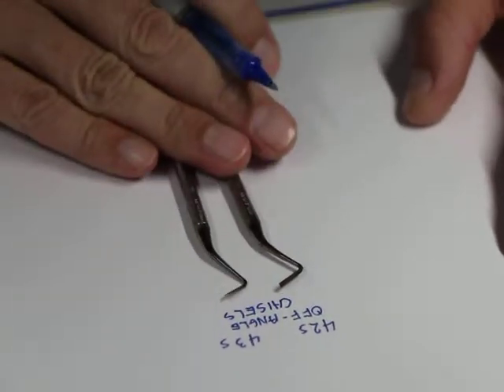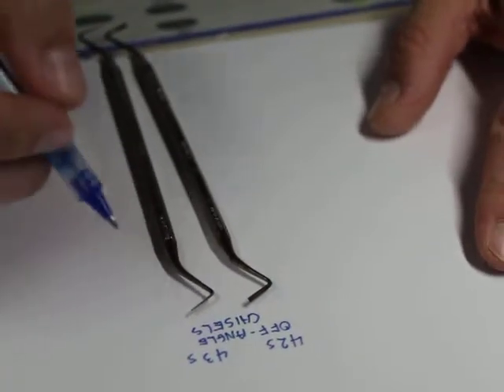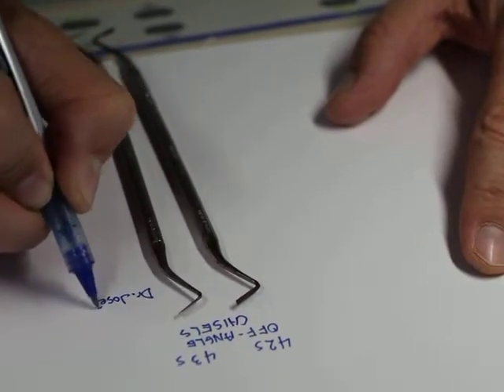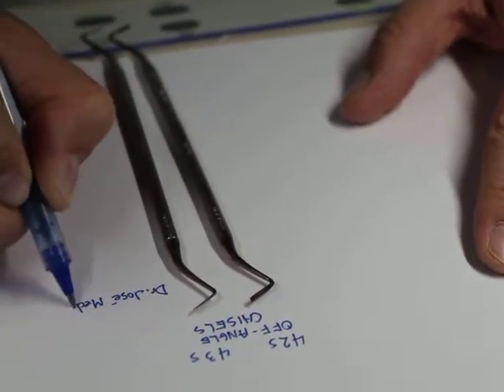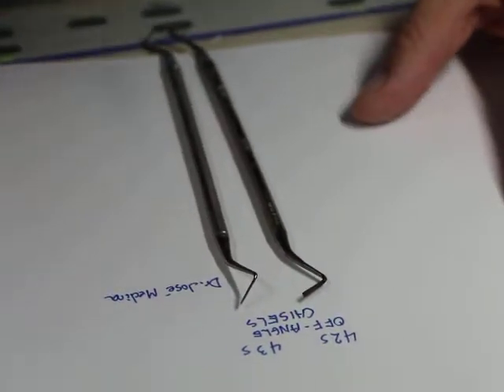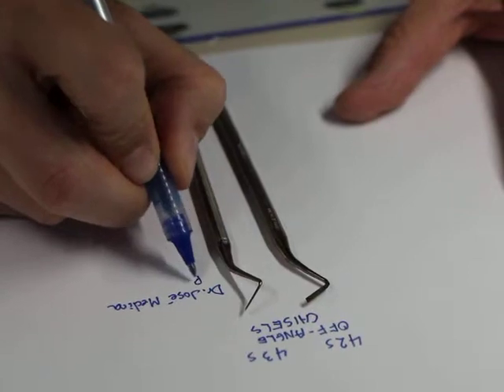And these instruments were invented by Dr. Jose Medina. Dr. Jose Medina. He's from Puerto Rico.